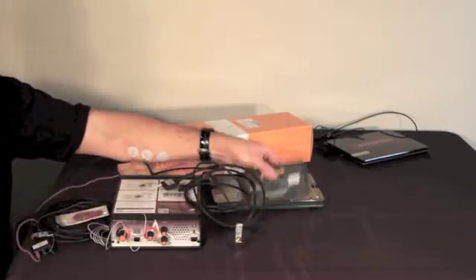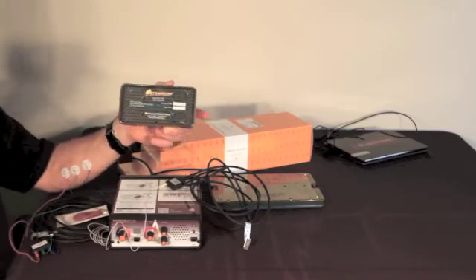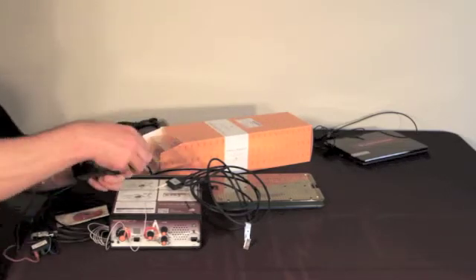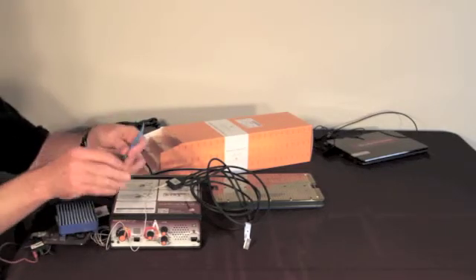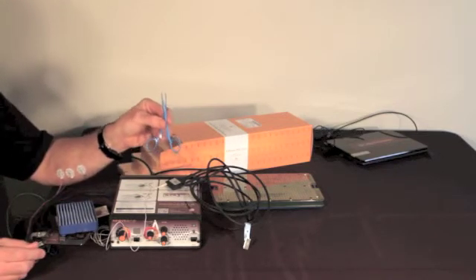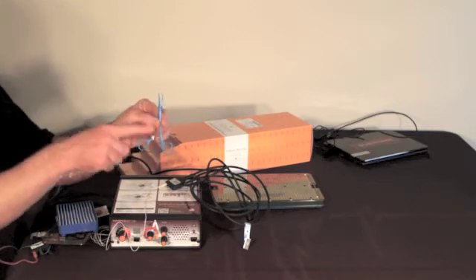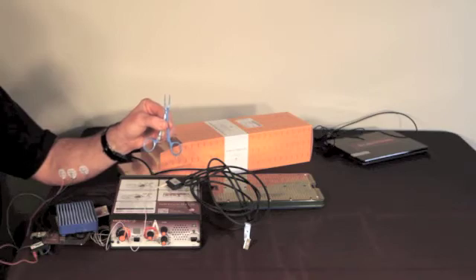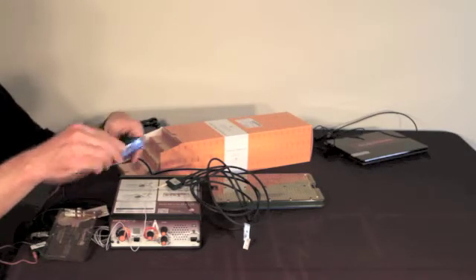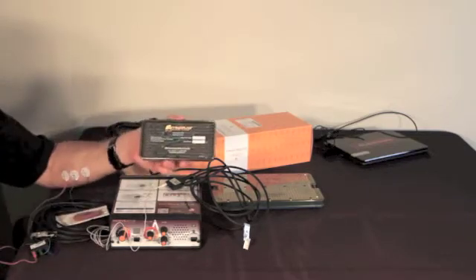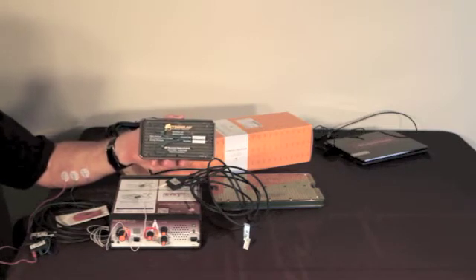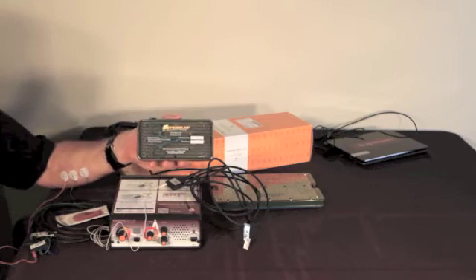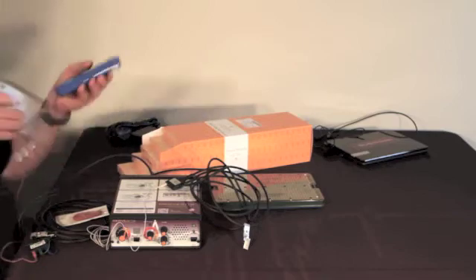With that said, it's time to discuss the stimulator probe and that final connection to have the Nirvana ready for surgery. The Nirvana utilizes reusable, modified probes—forceps actually. So they're modified to be a probe and they have a metal post and they have a blue insulation and then they have exposed tips that deliver stimulation, exposed metal. This needs to be sterilized prior to the surgery. So when I arrive on the morning of a surgery, I will pass this to the circulator nurse or the OR supervisor when I arrive so that they have time to flash sterilize it before the surgery begins.